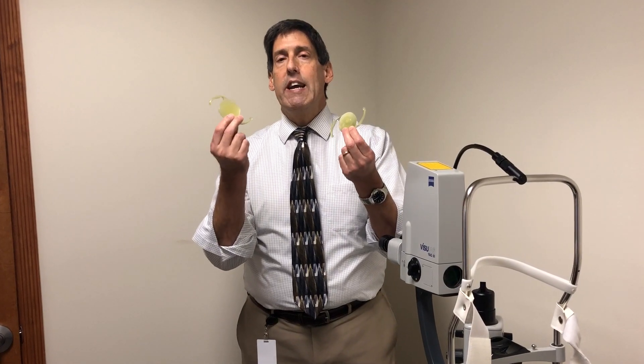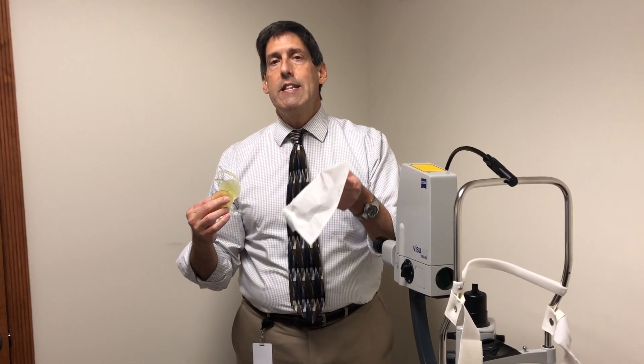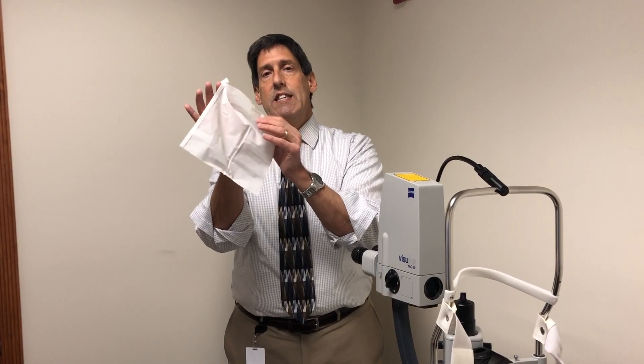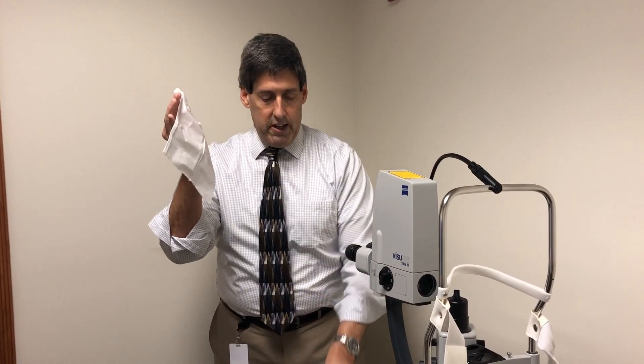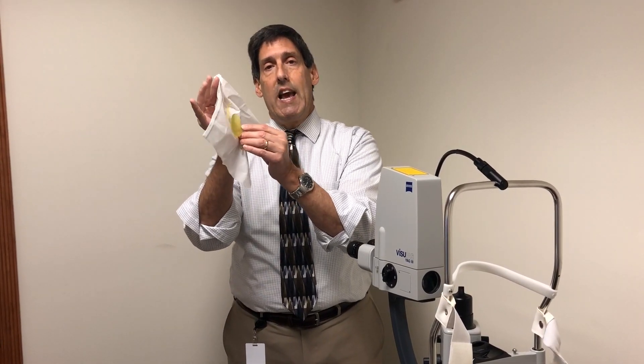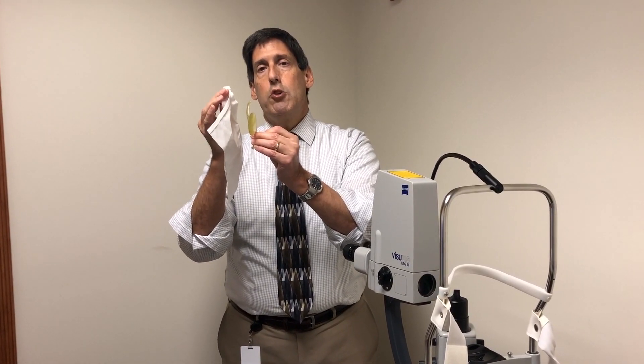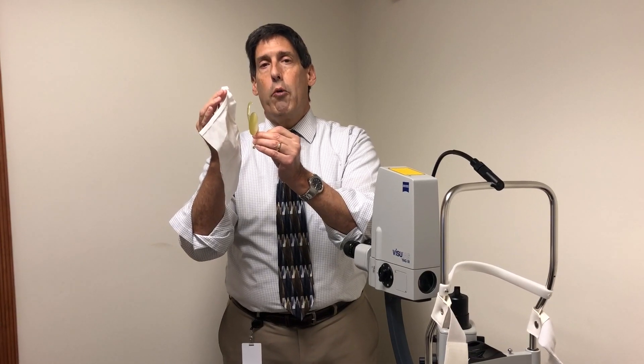At the time of cataract surgery, we put a lens implant inside the eye. Intentionally, we have to leave a little thin layer, which is actually the back layer of the cataract — we leave it in the eye. That thin layer is about the same thickness as this tissue. The reason we intentionally leave it is we place the lens implant up against this layer, and then the lens implant gets locked in place over the next week or two or three, so somebody can do cartwheels, somersaults, and backflips, and the lens will not move.